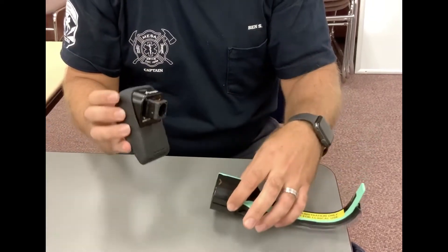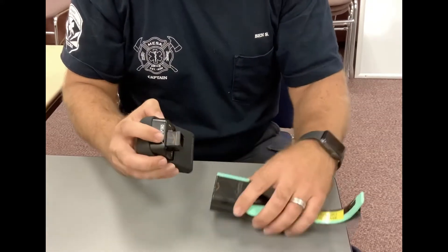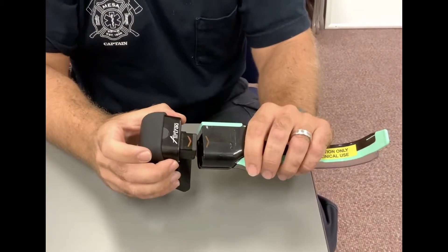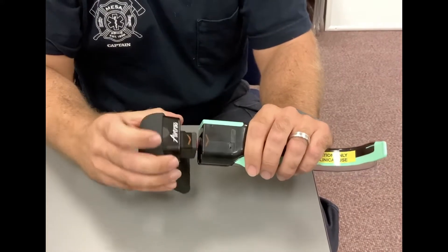With that being said, we have to be a little bit more careful when we place these into the blades. It now comes with two triangles — a triangle on your camera and a triangle on your blade. Get those two triangles close to each other and then you know that you're oriented correctly.